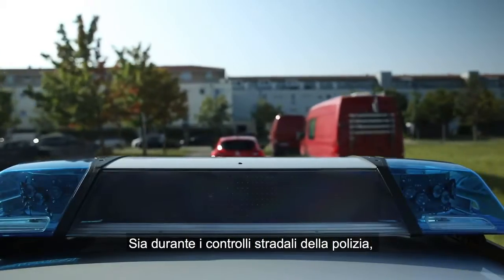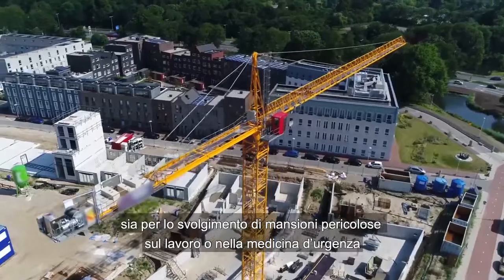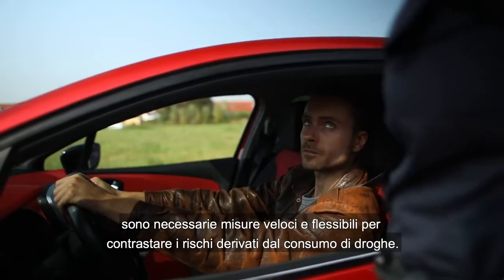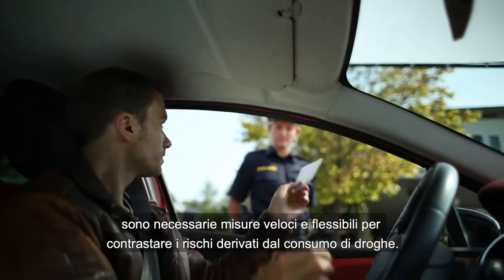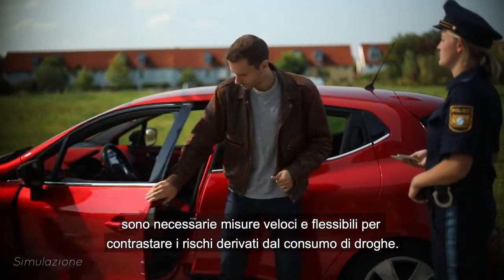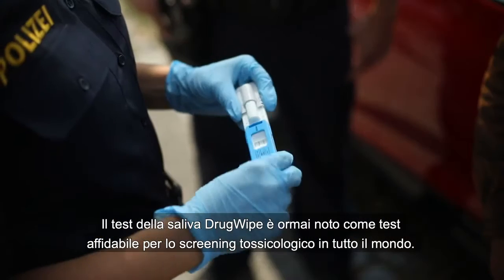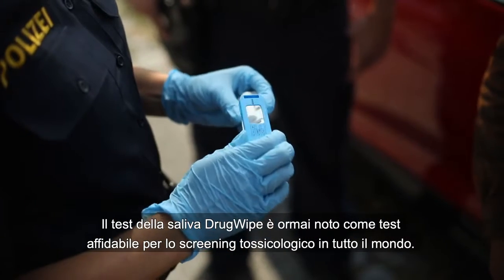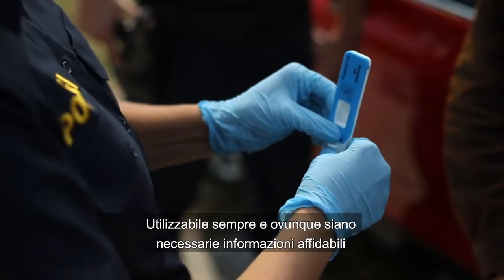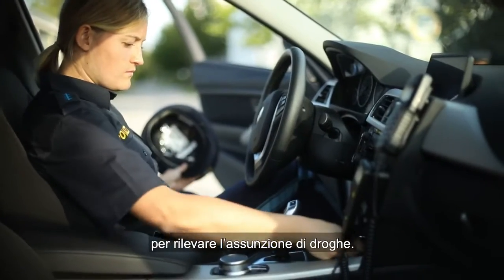Whether during traffic surveillance by police, the completion of dangerous tasks at work, or in emergency medicine, fast and flexible measures are needed to counter the risks posed by drug consumption. The Drug Wipe Saliva Test has been established as a reliable test for drug screening worldwide, whenever and wherever reliable information is needed to detect drug consumption.